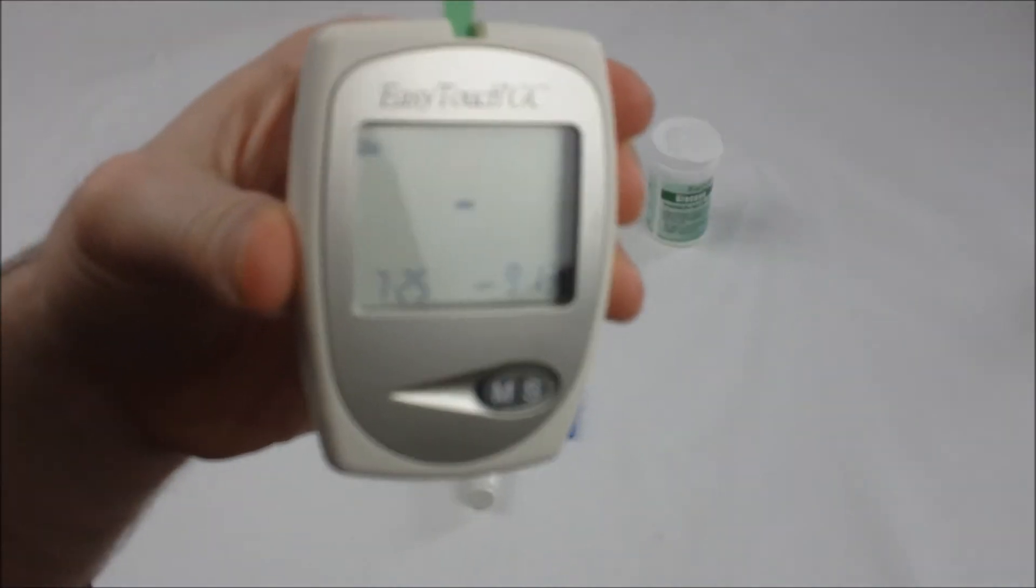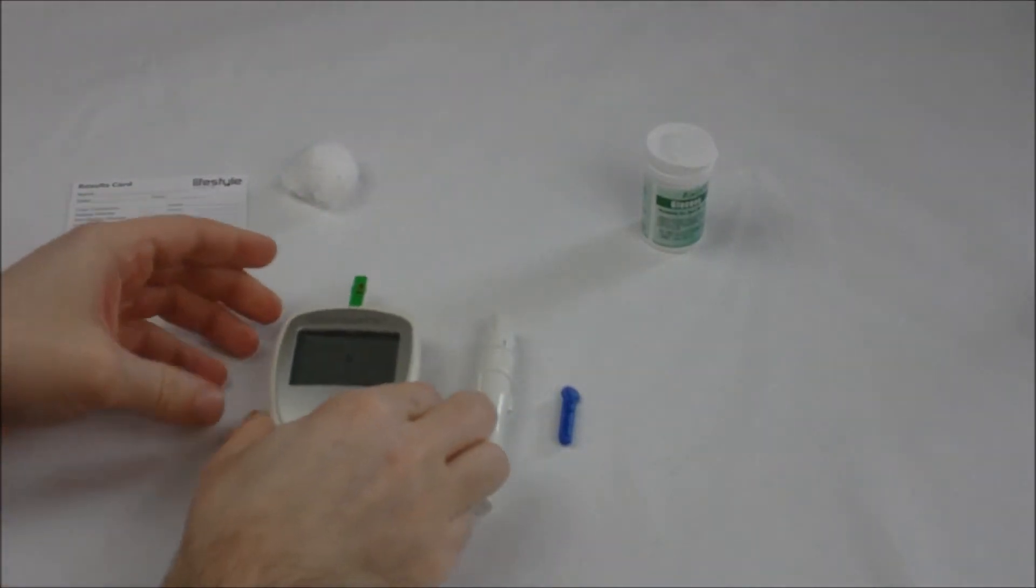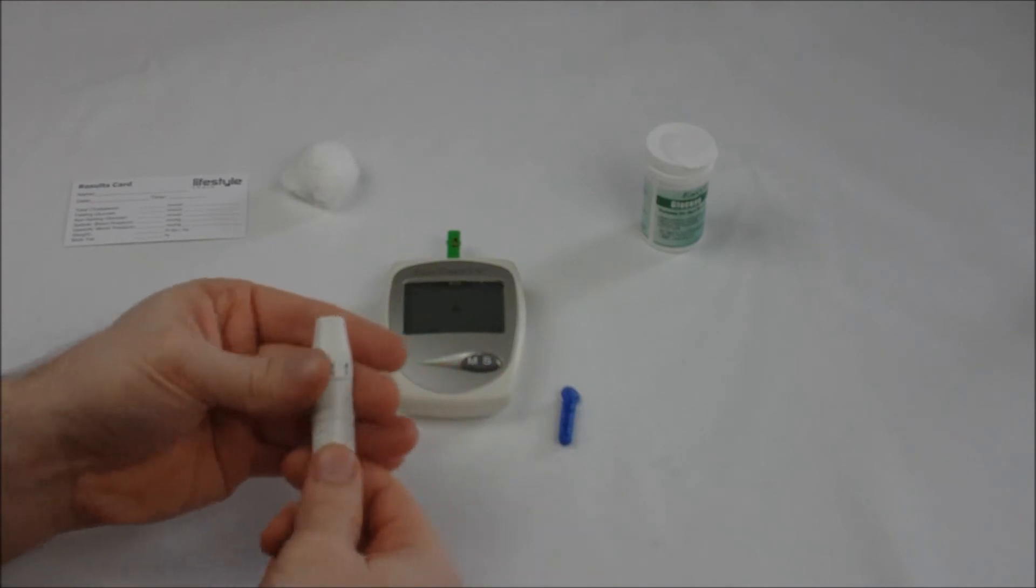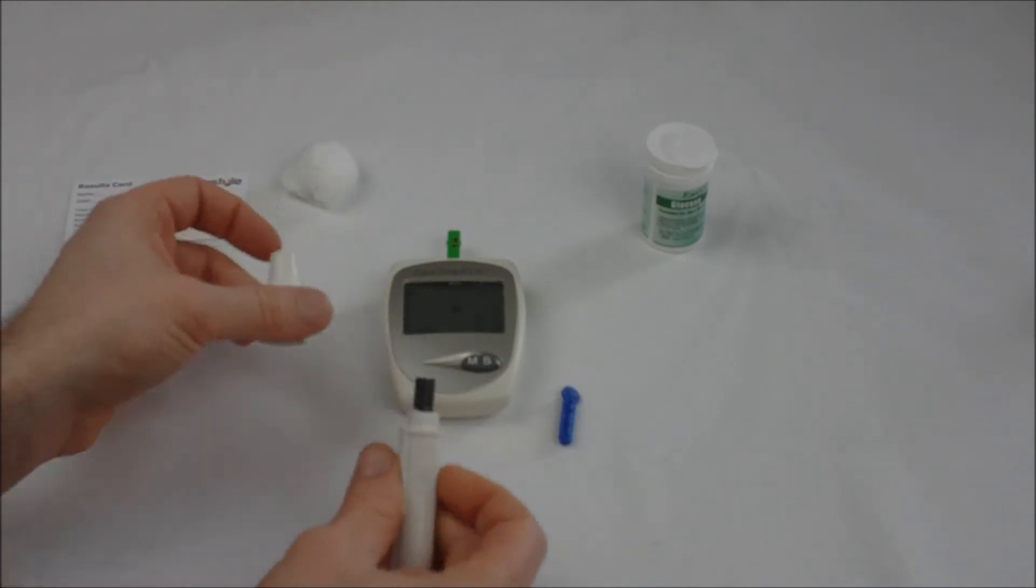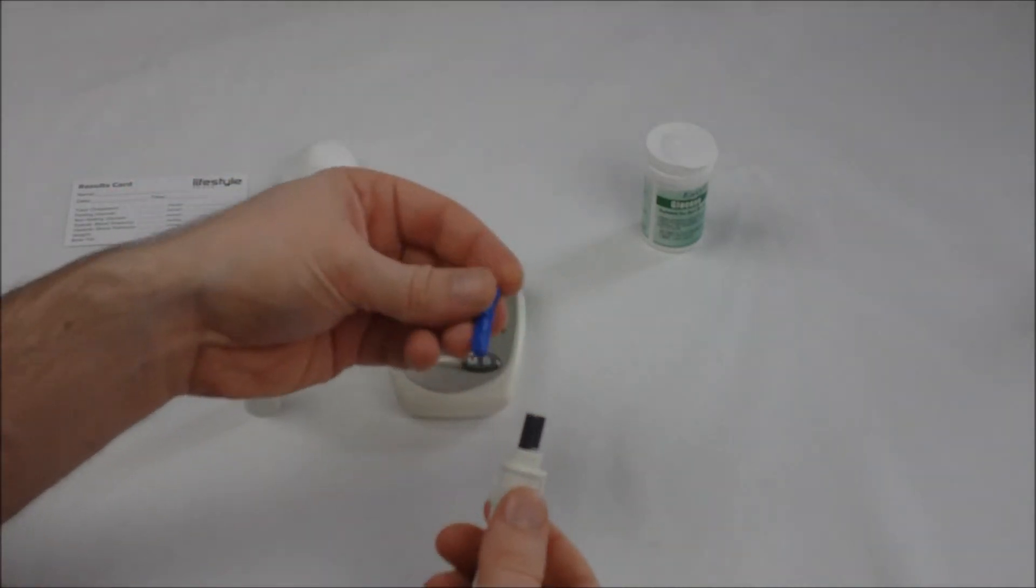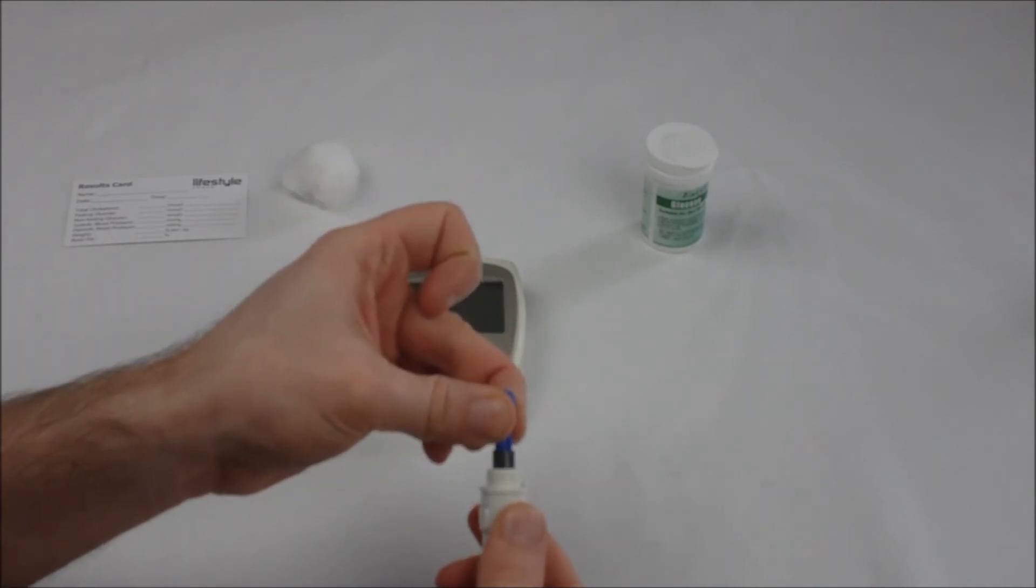Take your lancing device, unscrew it, place your blue lancet in the slot provided, and push down.